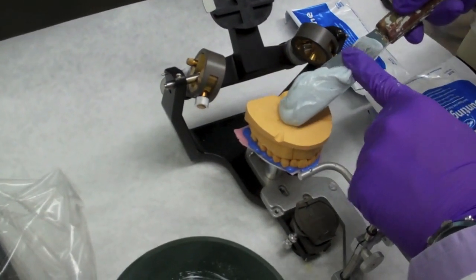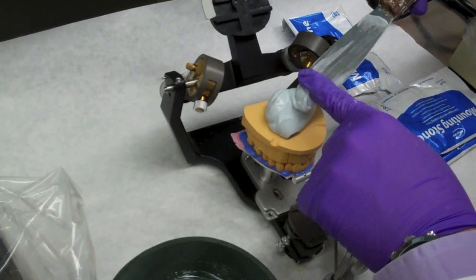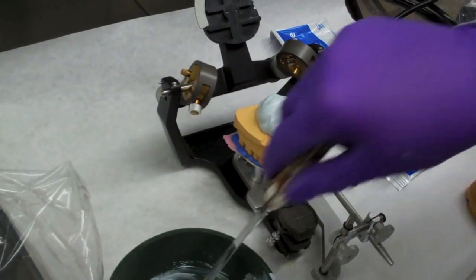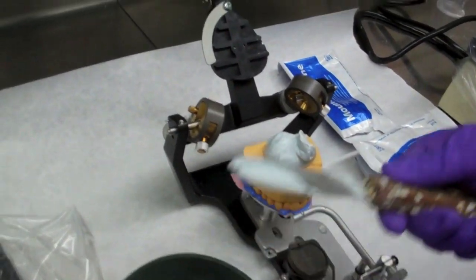When the consistency of the stone has been reached, drop stone on the middle of the model. Also apply stone to the articulating plate.